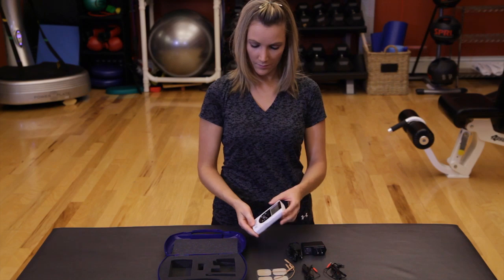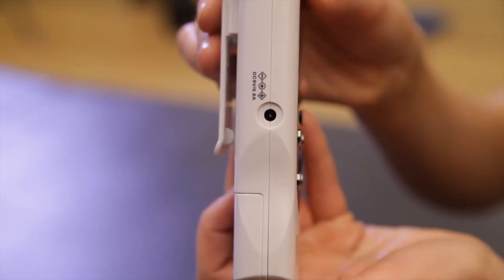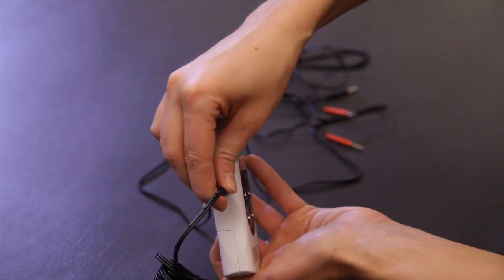As an option, the device can also be used with the AC adapter on the side of the device.